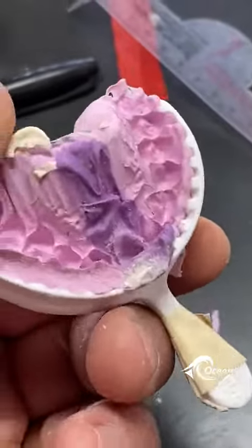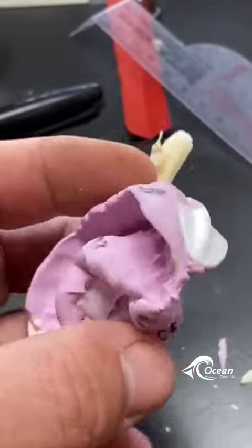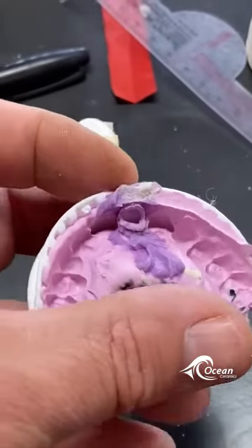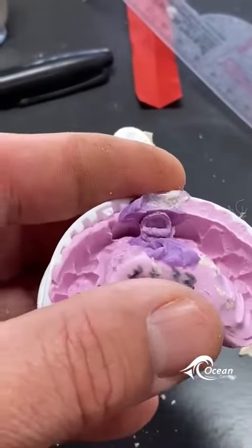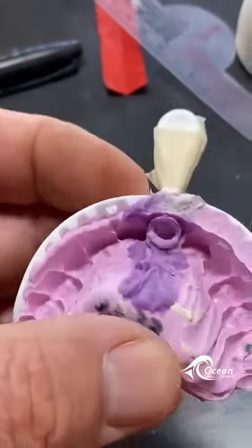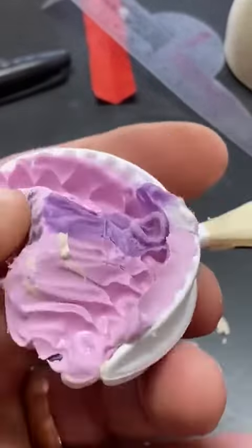Please, in the future, take a separate opposing tray and a separate vinyl master tray — even if it's sectional, you're way further ahead with no risk of a crown not fitting, especially an anterior that everyone is anxiously awaiting.